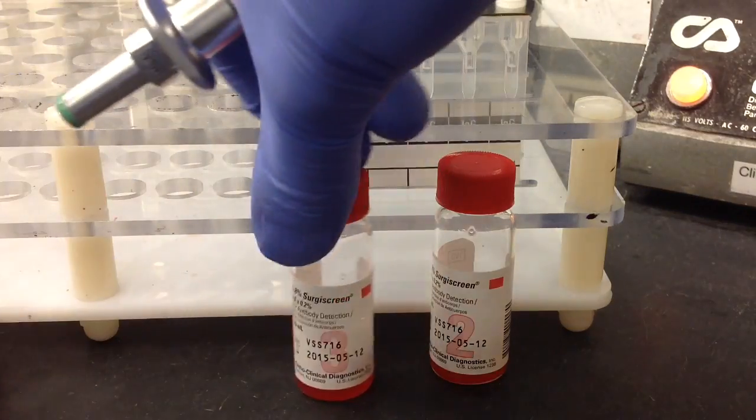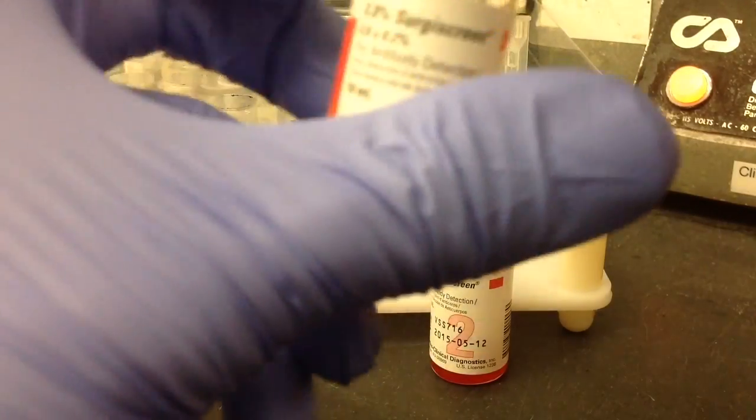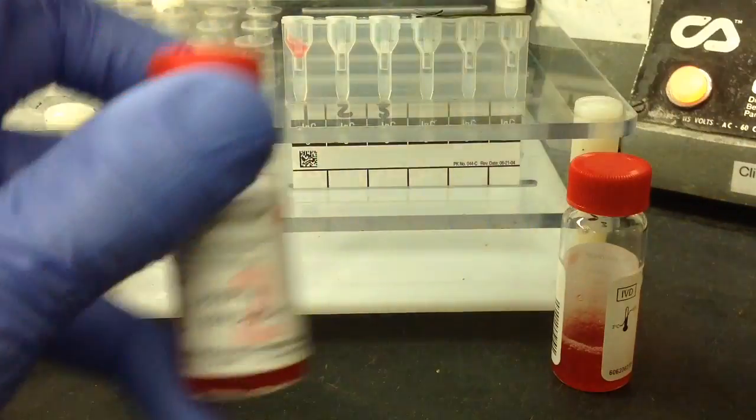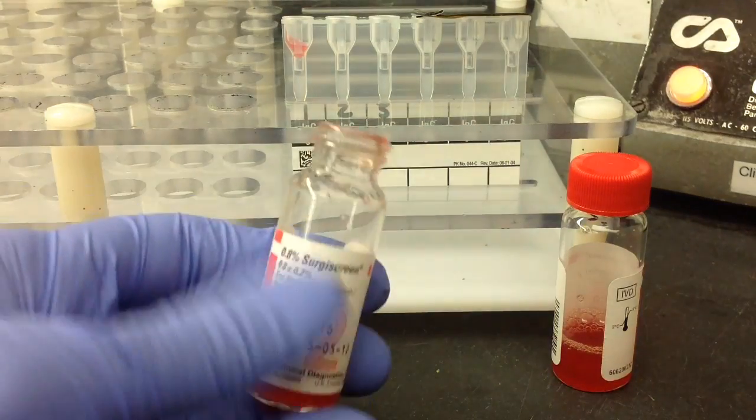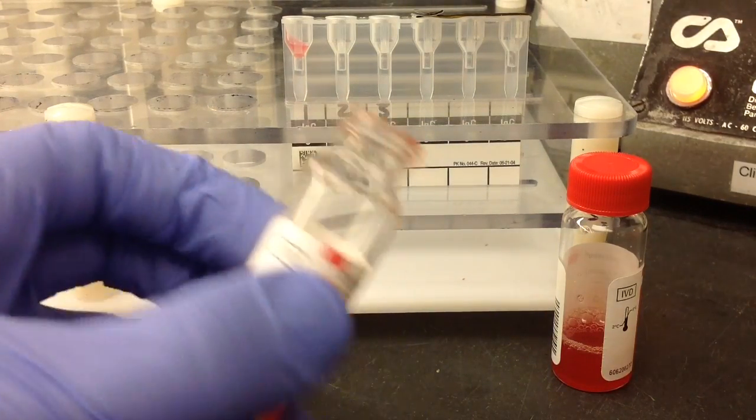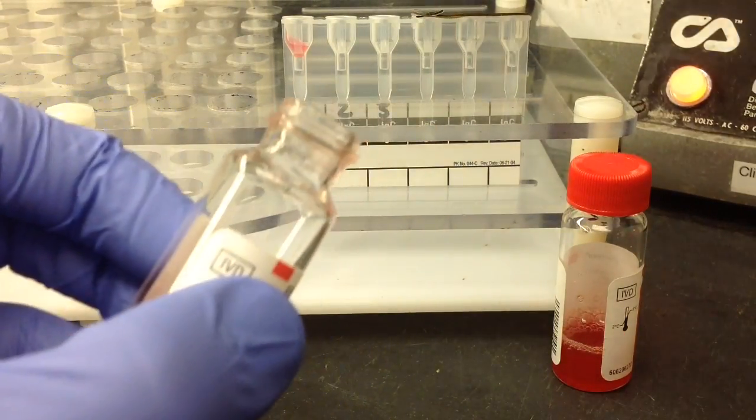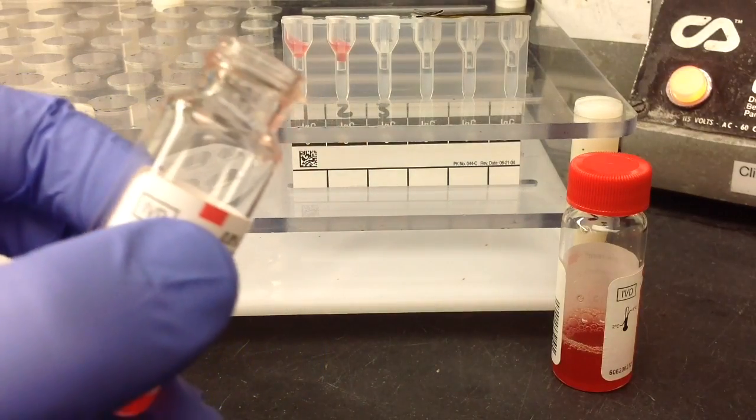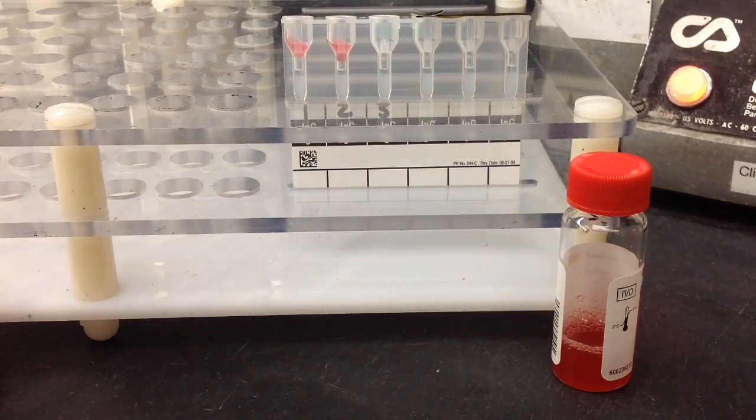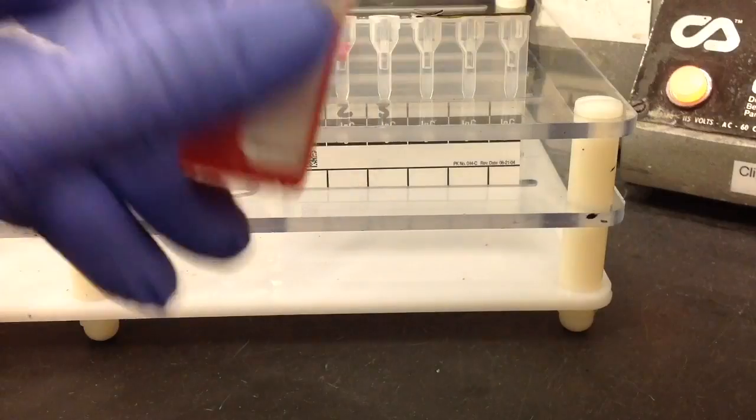So just go ahead and mix them before you use them. You don't want to shake them or anything, just mix them gently. I'm trying to keep the reagent red cells in the upper portion of the reaction chamber. I believe this is what they recommend, at least it's what we try and do where I work.